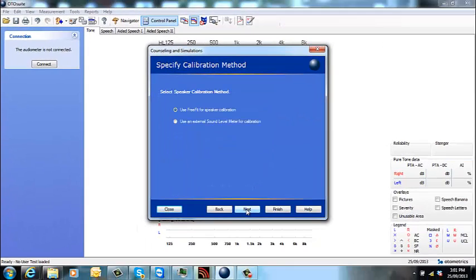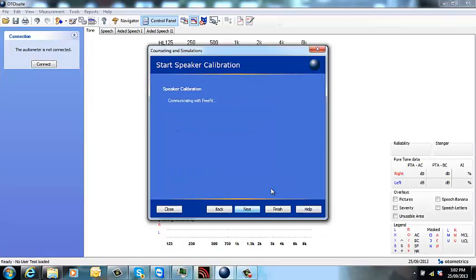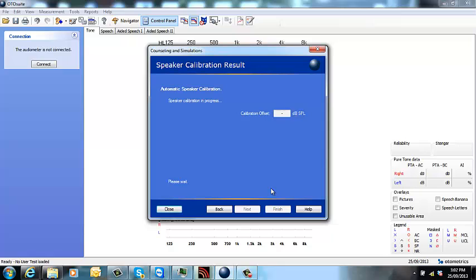Now it's going to start talking about calibration. Always use FreeFit for speaker calibration. Make sure your FreeFit is switched on and within reach. Now I want you to put the FreeFit wherever your patient will be sitting in your room because you're going to do room calibration. Close out any doors and make the room as quiet as possible. And the speaker is going to generate some noise to do the room calibration. So make sure the room is nice and quiet.